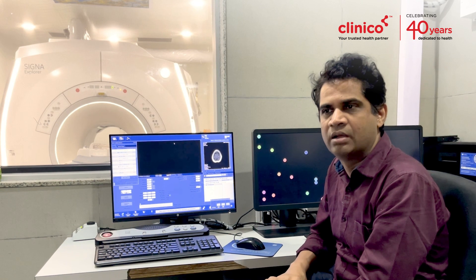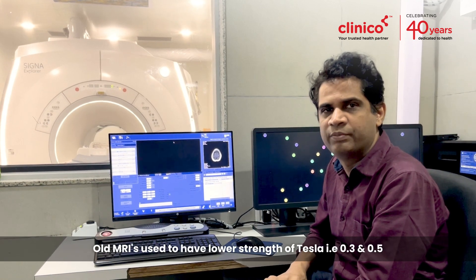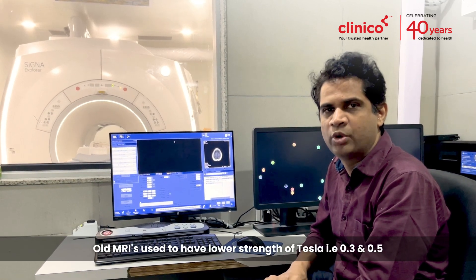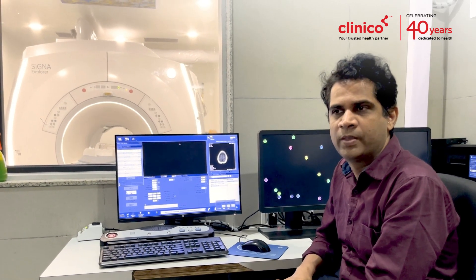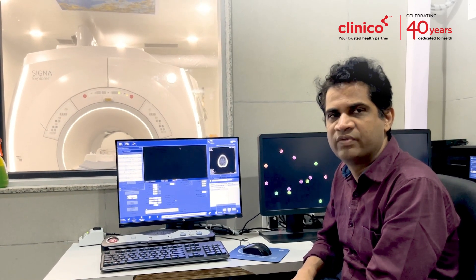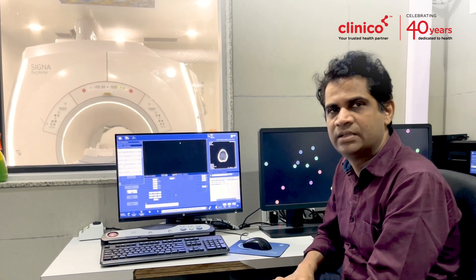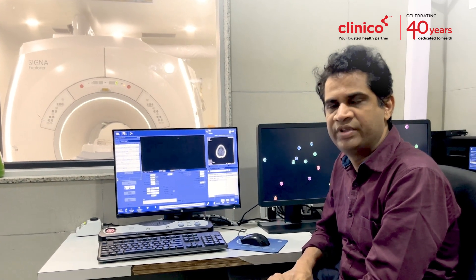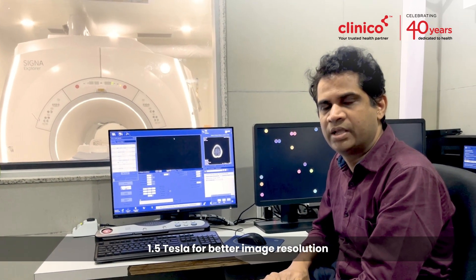MRI has different strengths, termed in terms of tesla. Previously we used to have 0.3 tesla and 0.5 tesla MRIs. Since the imaging quality was low, nowadays we are working on higher strength, so we have 1.5 tesla MRI.